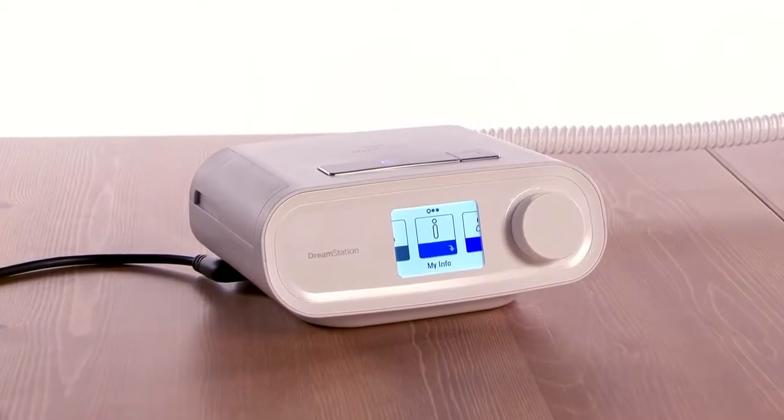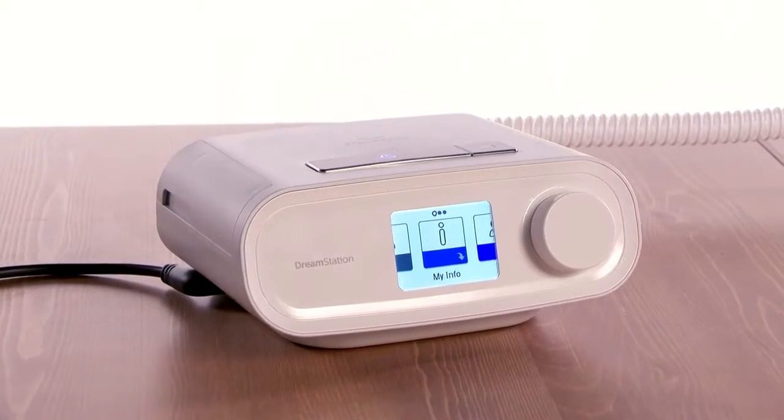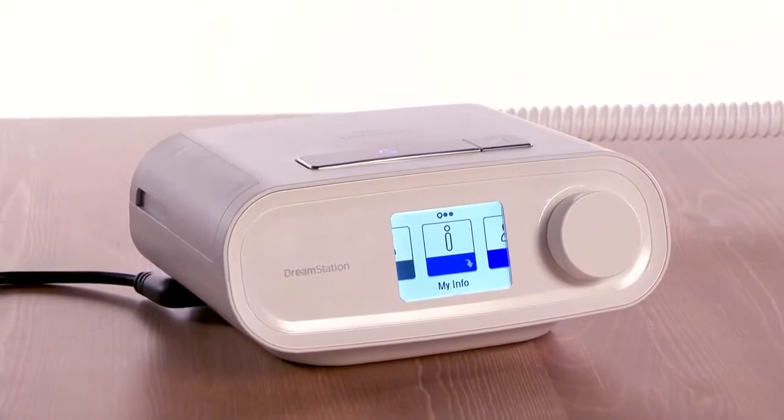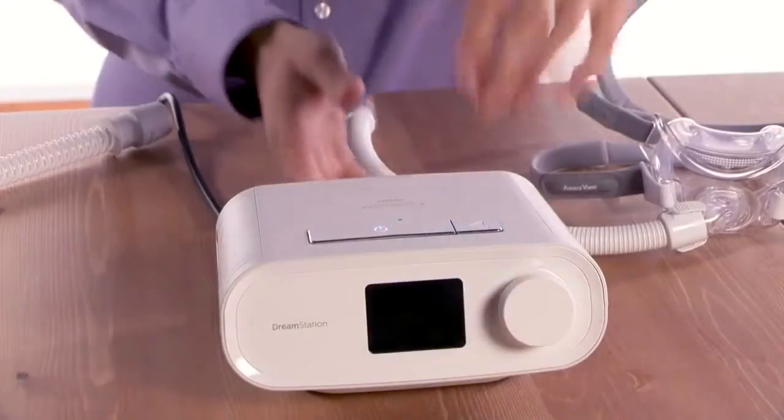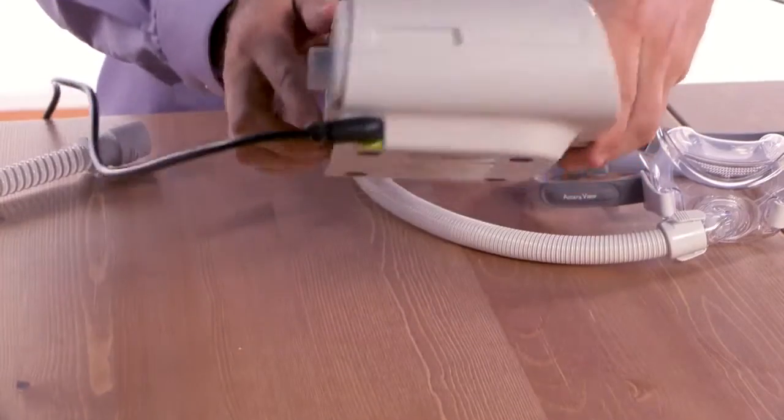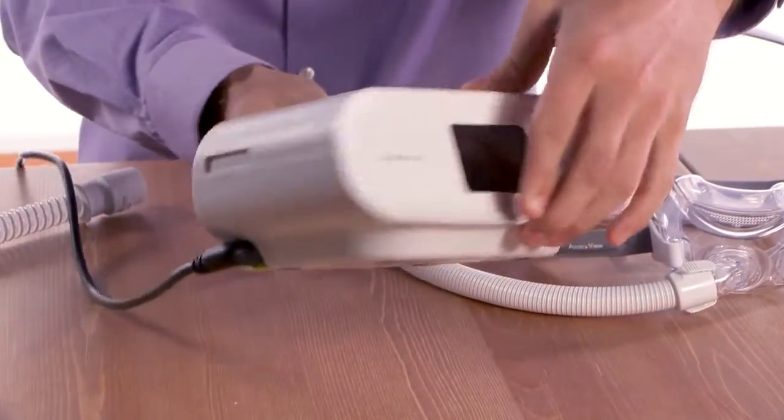For daily use, place your DreamStation on a firm, flat surface at a slightly lower level than your sleeping position. Make sure the device is plugged in and that air can flow freely around it.